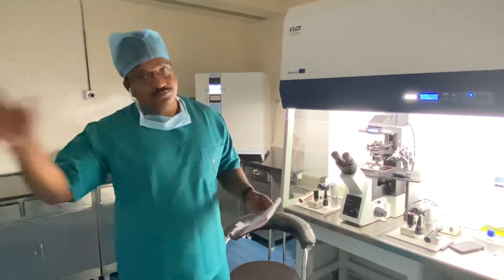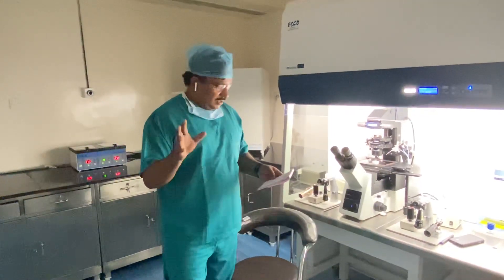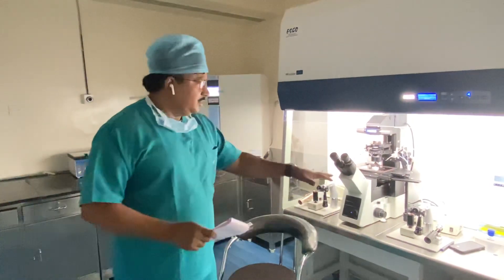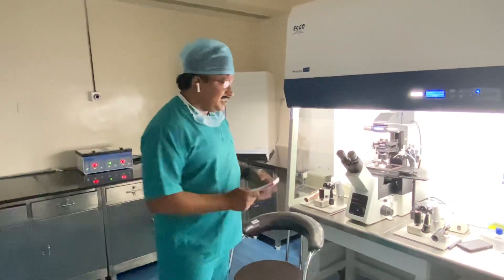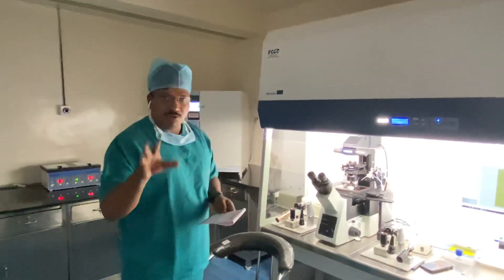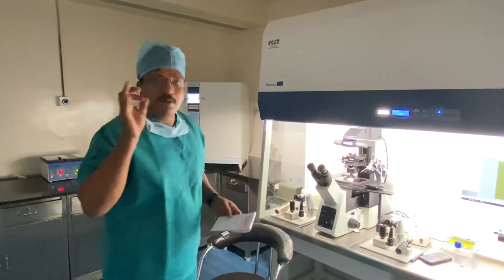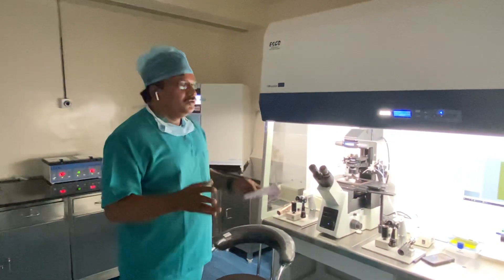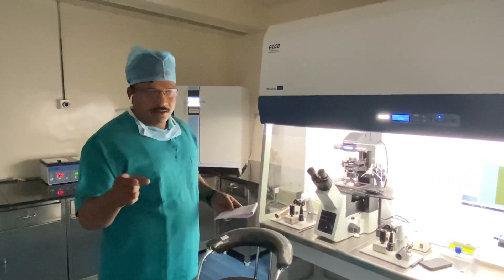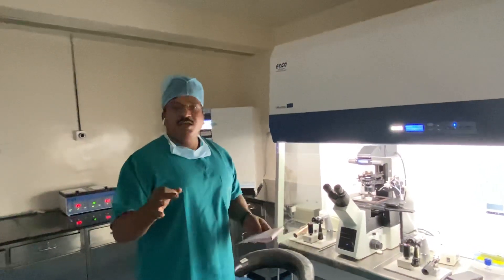These abnormal forms are producing genetically abnormal babies — we have to study all this. Since I am not a geneticist, I am just trying to reach a conclusion for better understanding. Today he has 100% abnormal morphology.